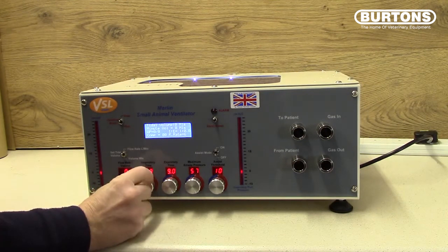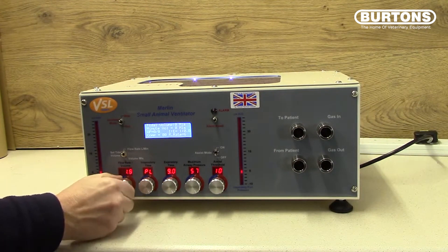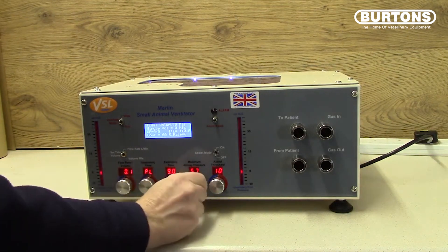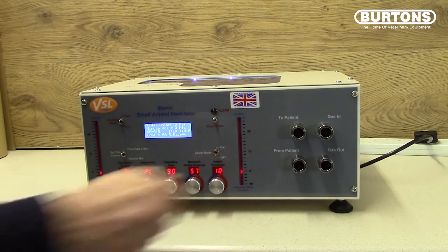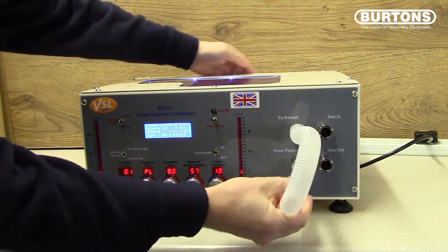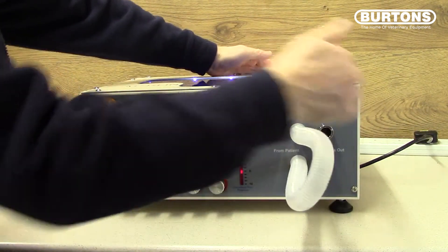Set the inspiratory time fully clockwise to PL, flow fully anticlockwise to 0.1, expiratory time fully clockwise to 9, set maximum working pressure limit right round to 57, assist mode right round to 10. Then connect the tube from 'to patient' to 'from patient' and have nothing else connected to gas in or gas out.